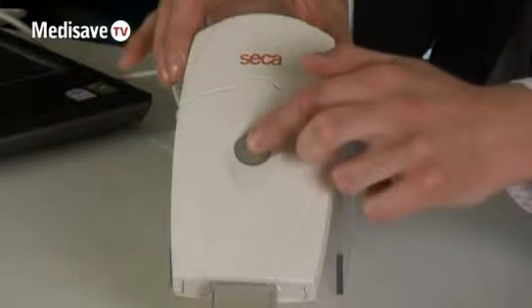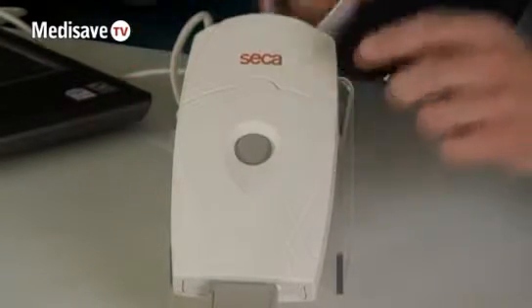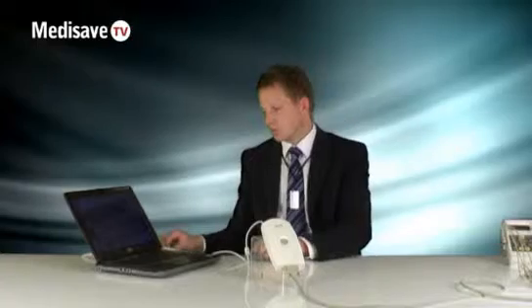The PC based ECG machine is very straightforward and simple to use. Simply turn the unit on with one press of the button on the front of the unit, once the machine is plugged into the USB of your computer.